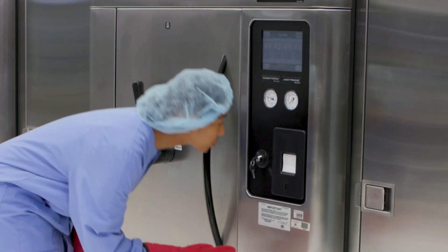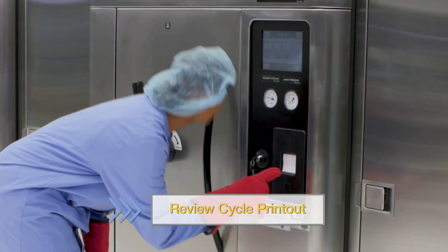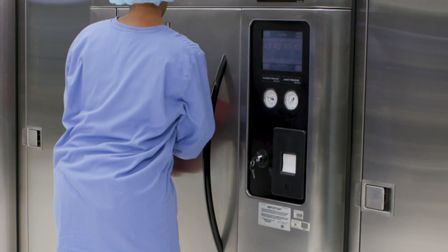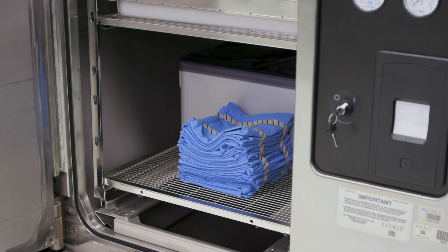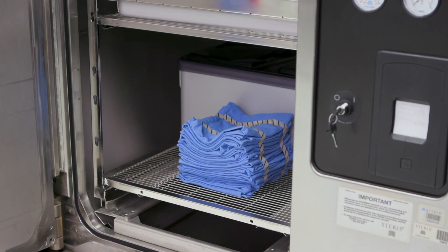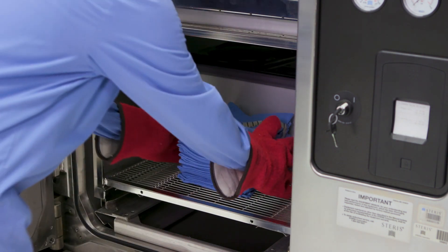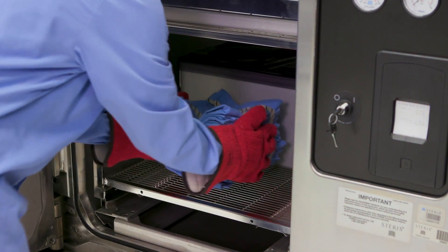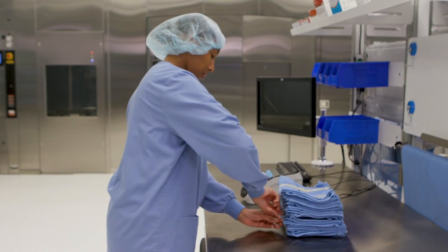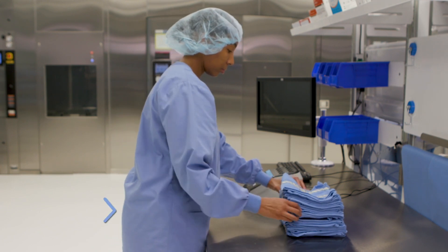Upon cycle completion, review the cycle printout to confirm all parameters were met. If all parameters were met, remove the challenge pack from the rack. The pack may be hot — use thermal protective gloves to remove. Once the challenge pack has cooled, remove the BI and chemical indicator.